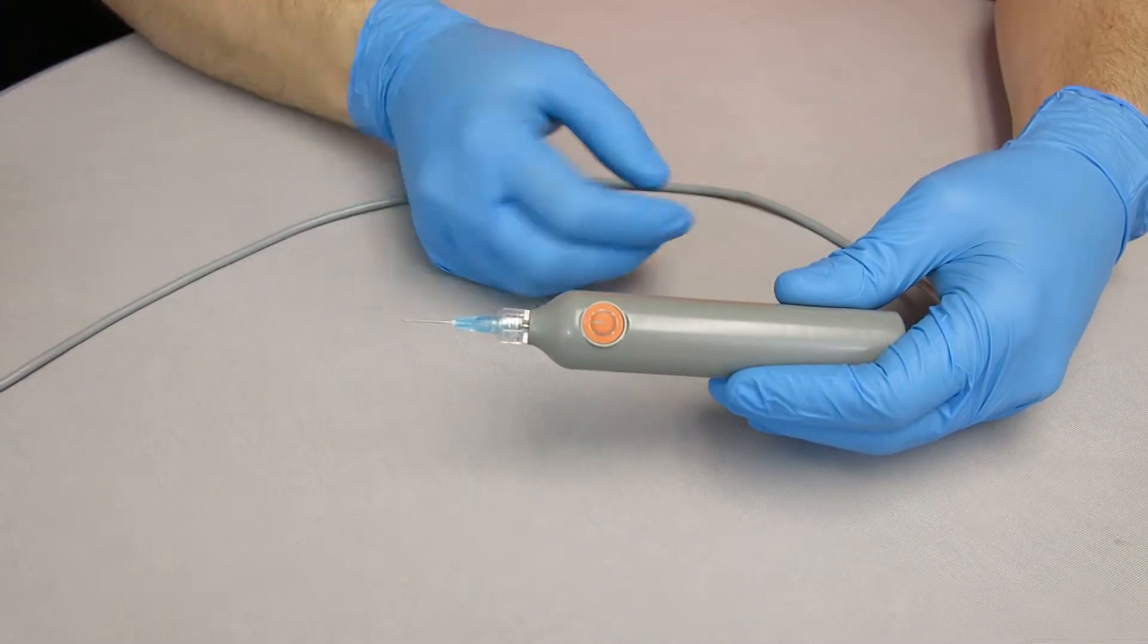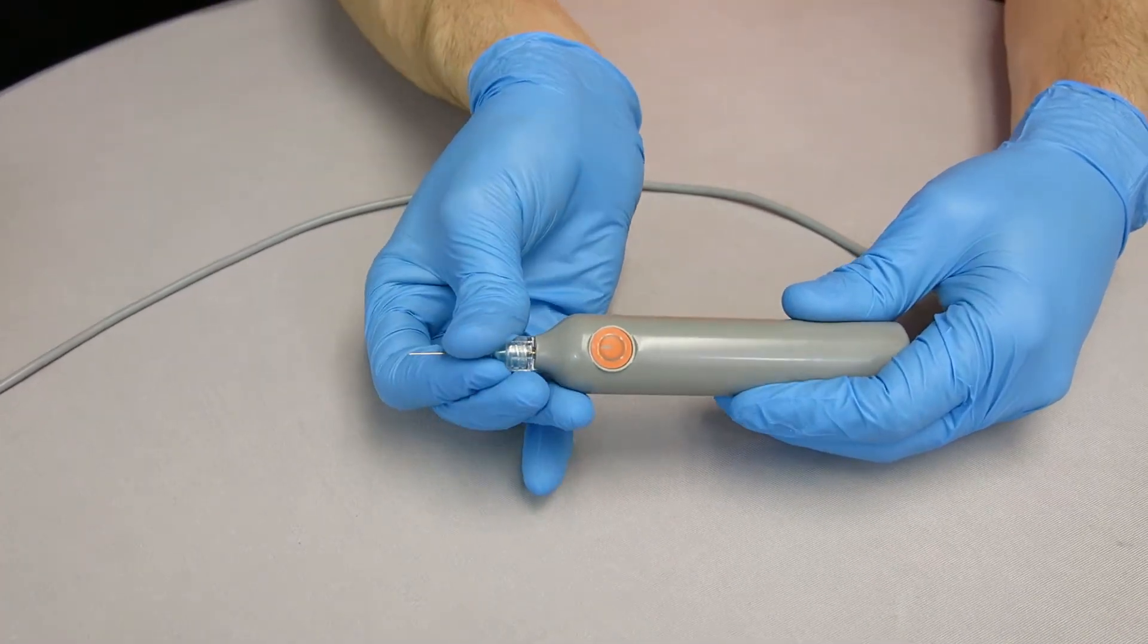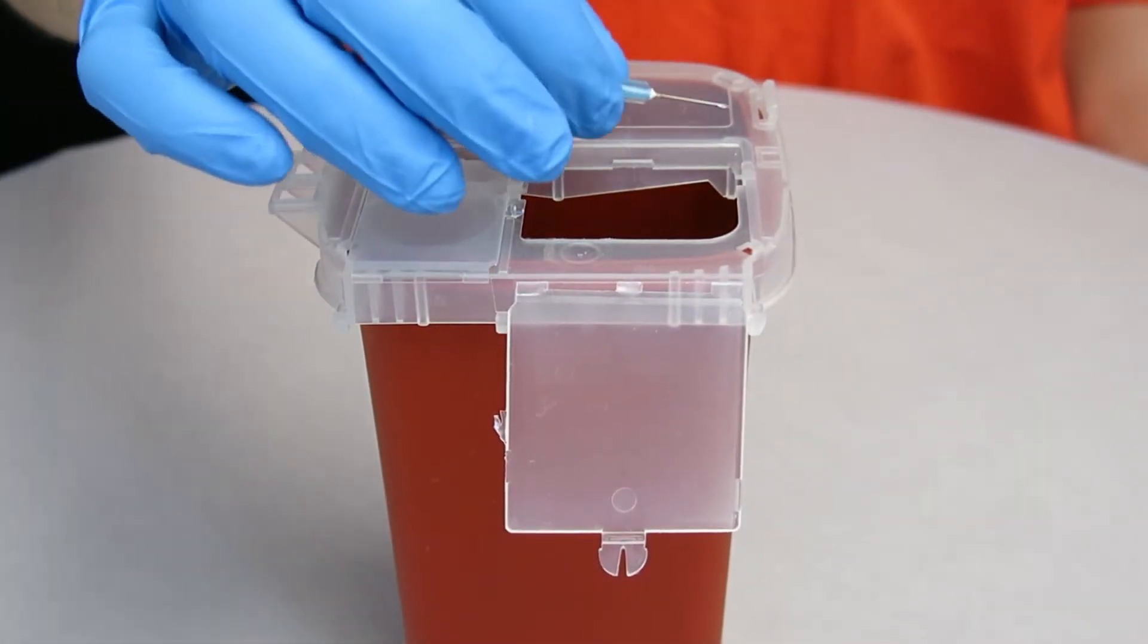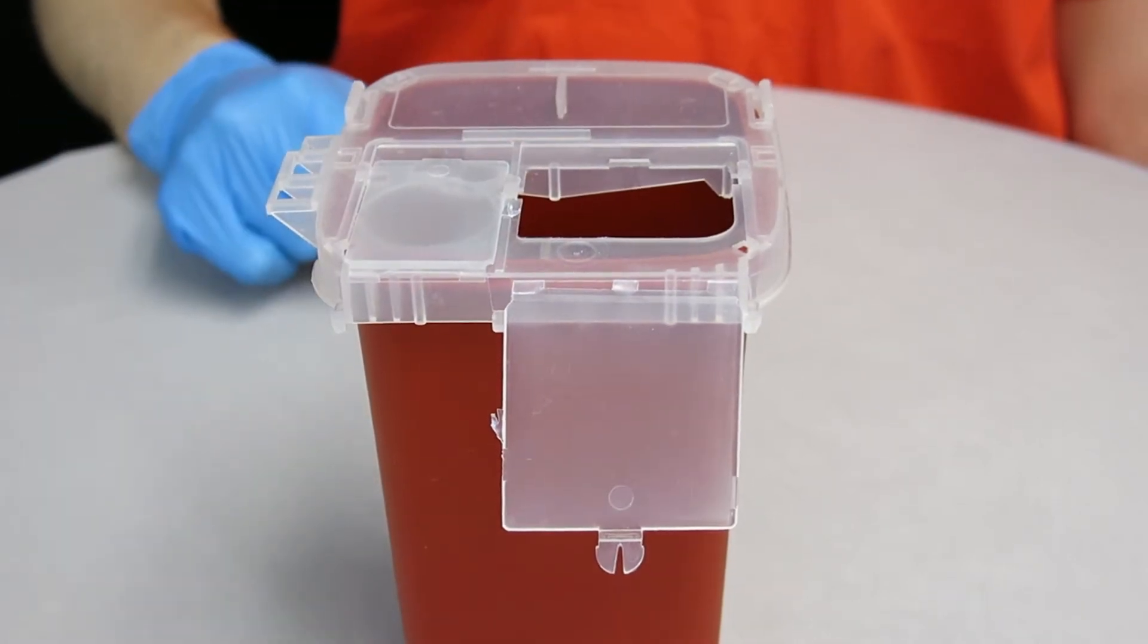We recommend you remove the sharp from the Luer connector, keeping your hand away from the tip of the sharp. We also recommend that you never recap the sharp. Dispose of used sharps according to your facility's policies and protocols and applicable government regulations.